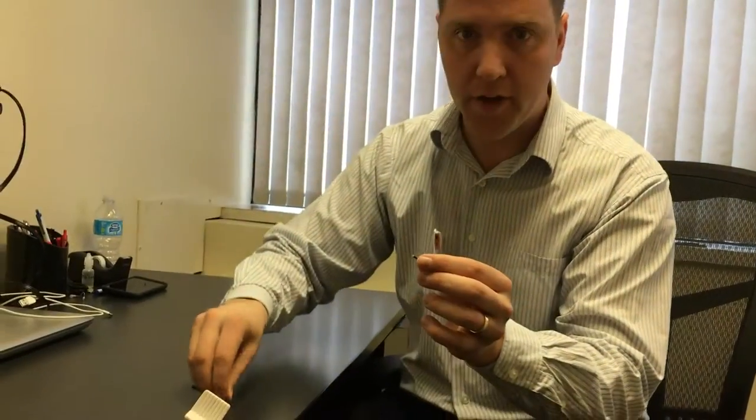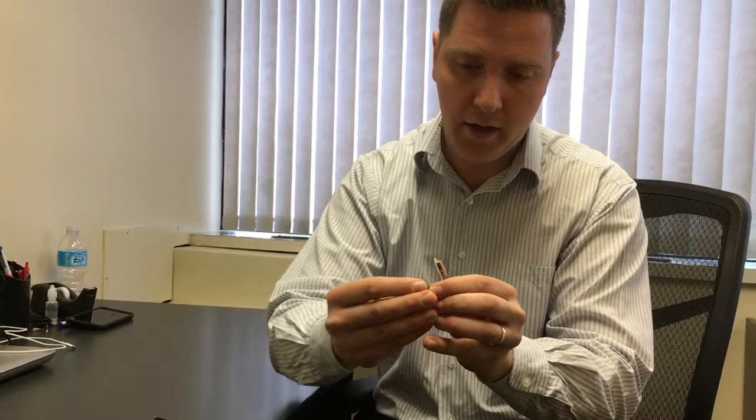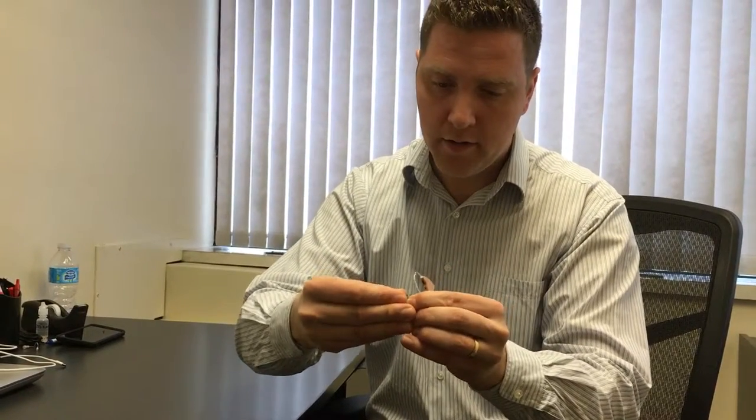And then of course don't forget to put the dome back on. If the hearing aid still doesn't work at that point, I do recommend you phone your local hearing clinic and get that sorted out. But 90% of the time that's going to solve the problem for you.